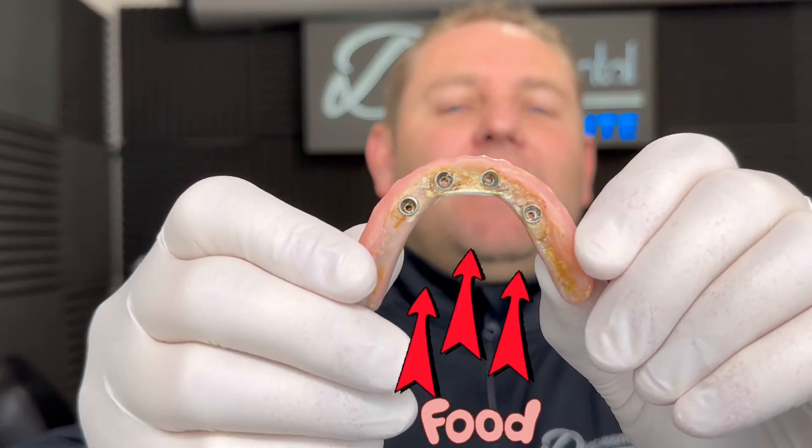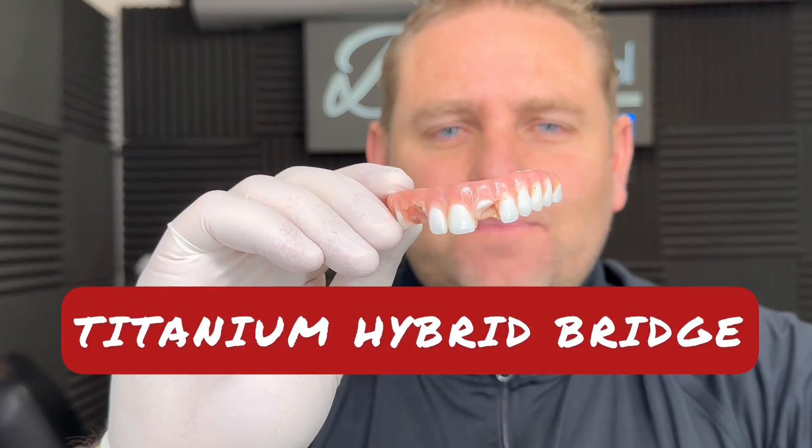Okay, so let's do it. For step one, what do we do with this? So let's define what this is. This is a titanium device. And let's just define what that is.